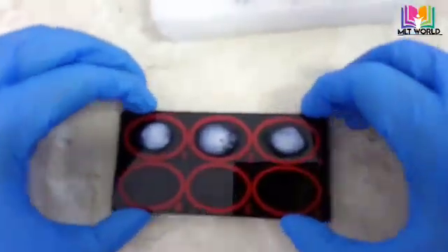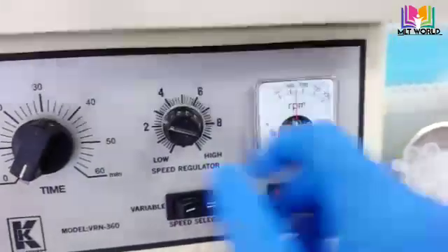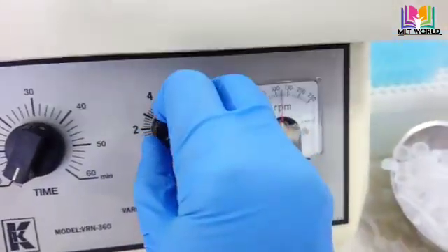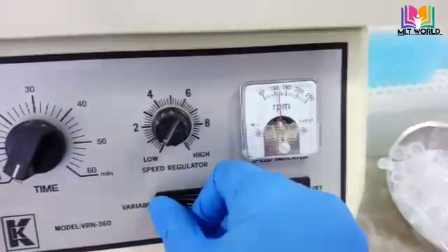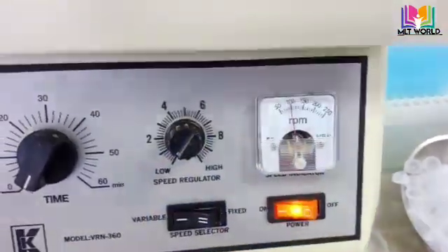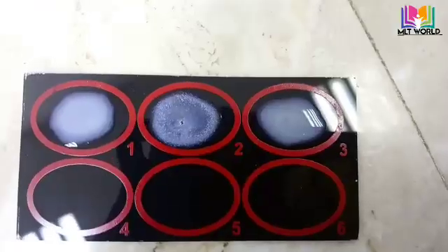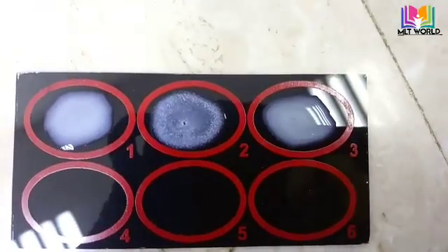We will keep it at 100 rpm on a mixing rotor for one minute. If you don't have a rotor, just mix well by hand for at least one minute. After one minute we will see the result. The negative control was the first circle, positive control was the second circle, and patient sample was the third circle.